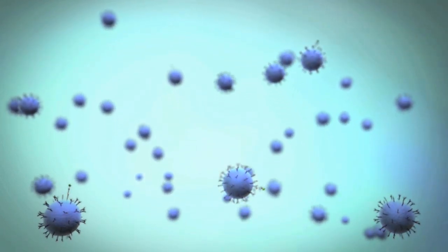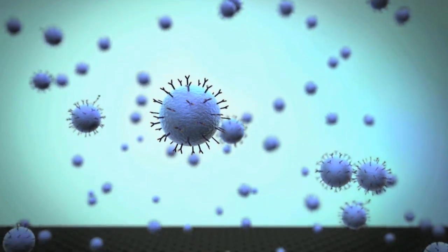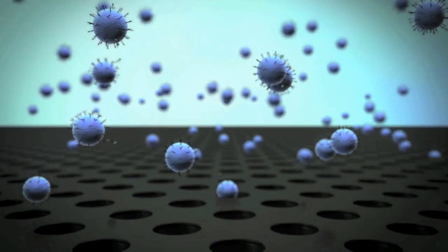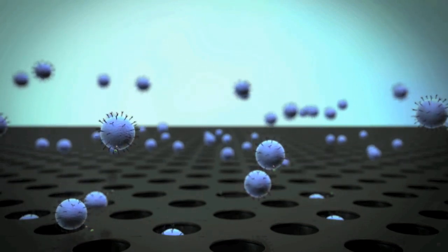An enzyme substrate is then added, and the sample is loaded into arrays consisting of more than 200,000 microwells, each of which is only large enough to hold one bead.